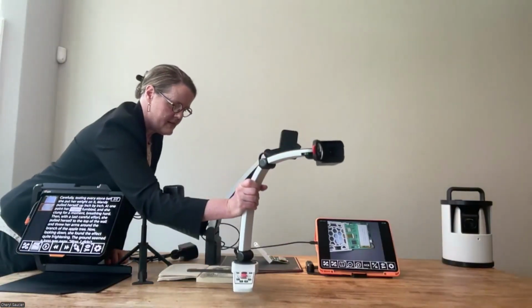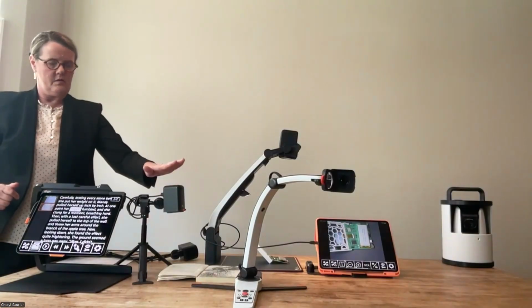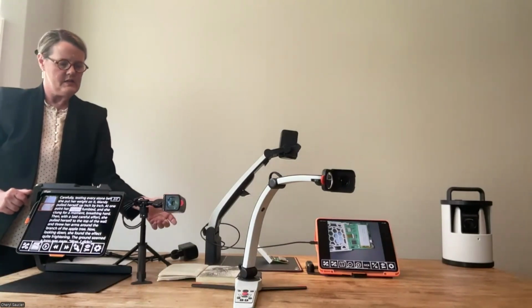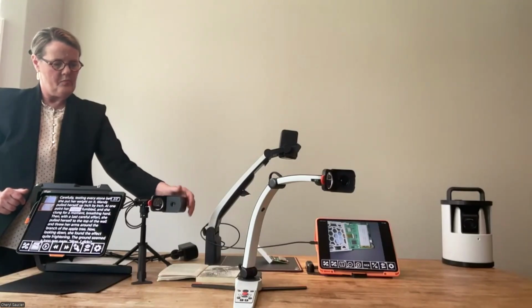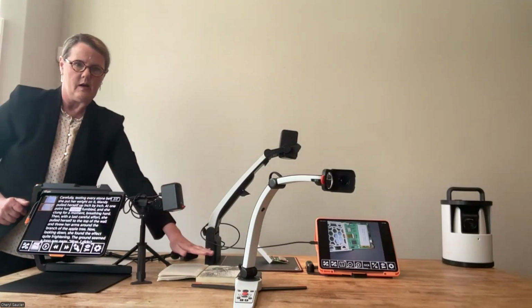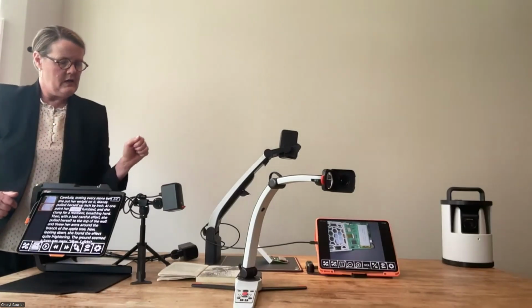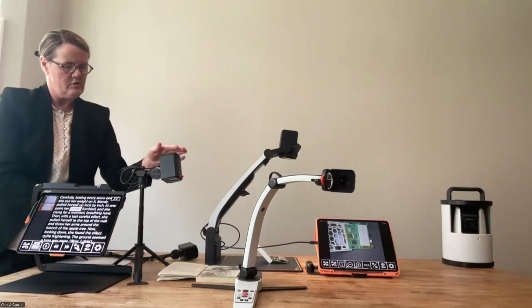And when I put it back down here, you can see it kind of in comparison with the Mini. So the Mini, lower profile, smaller device, less weight. And for those who just need that distance, there it is. You just adjust the camera that way, open the lens, close it, and then bring it back down and tilt it out just a little bit, and you've got plenty of space for near viewing. You can see the Mini is smaller than the S. You can, as I mentioned, raise it up. It's got that telescoping feature.